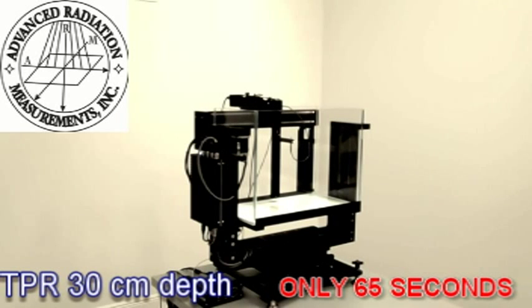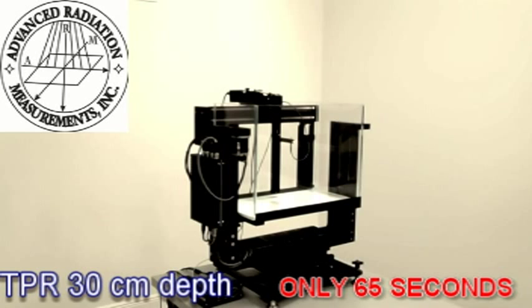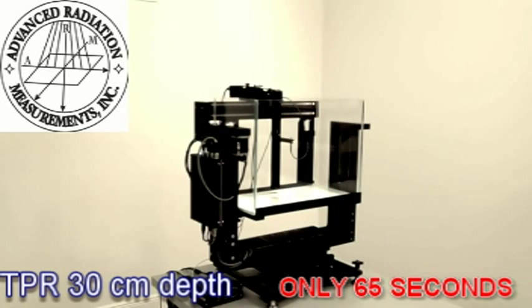The time required for a TPR at 30 centimeters depth is only 1 minute 5 seconds, which, if compared with that of our competitors, is dramatically reduced.